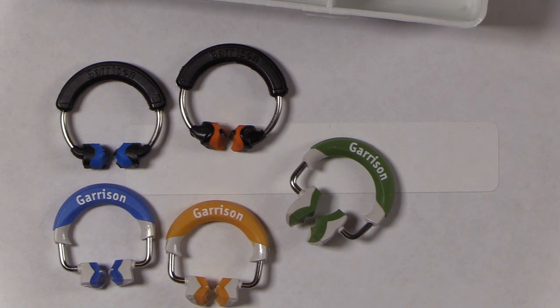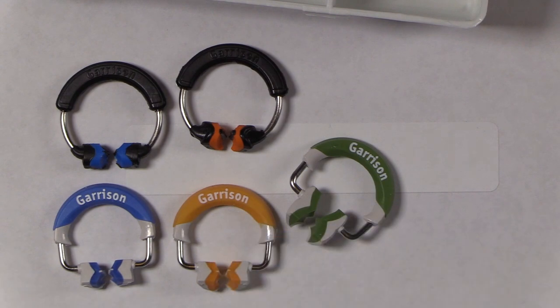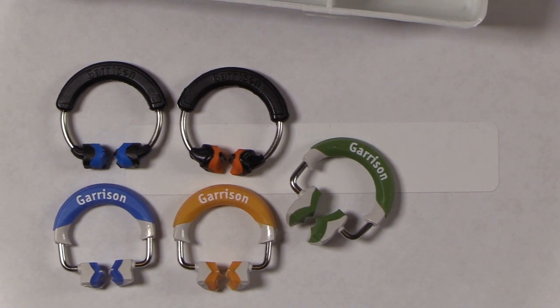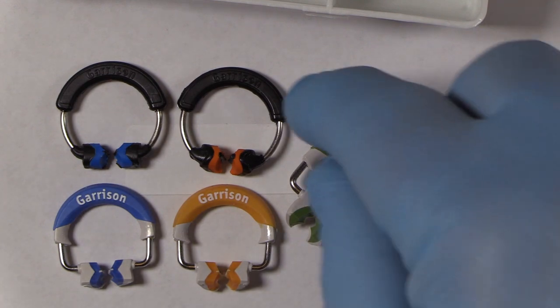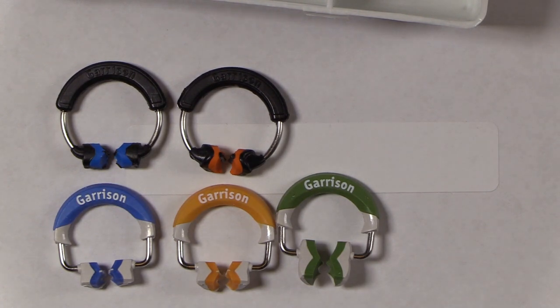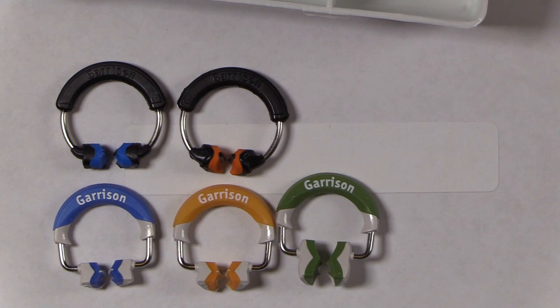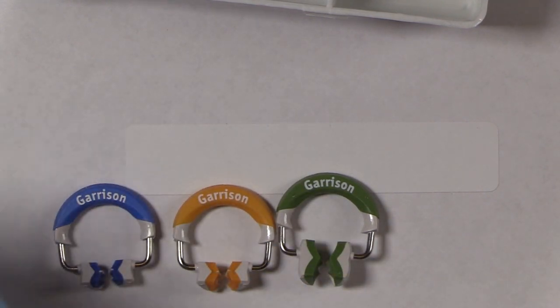The old ring is essentially circular; the new one has more of a horseshoe shape. That change in shape shifts where you grip the ring to open it, giving better mechanical advantage and making the ring substantially easier to open. Existing customers at trade shows invariably notice how much easier it is to place, yet it generates more tooth-separating pressure — a tremendous benefit especially for dentists with smaller hands or arthritis. The green wide prep ring's wider tip bridges really wide preps without crushing the band into the preparation.